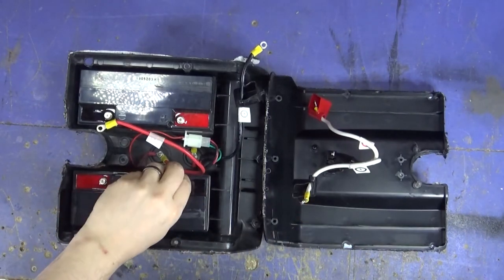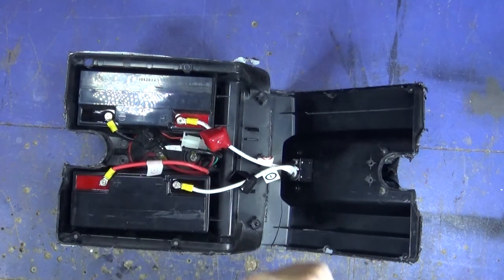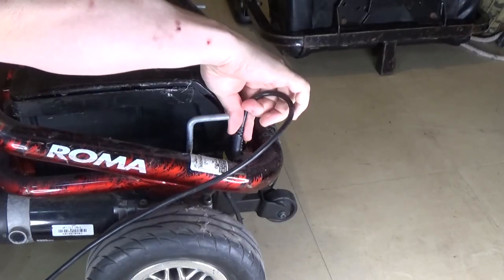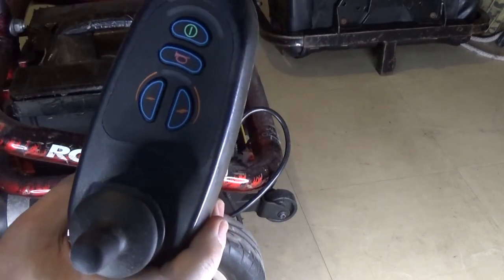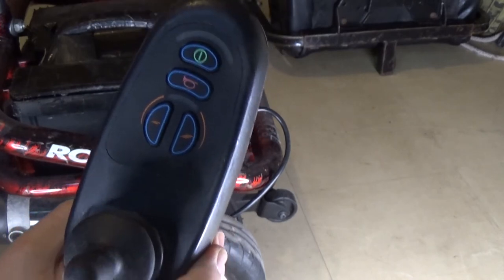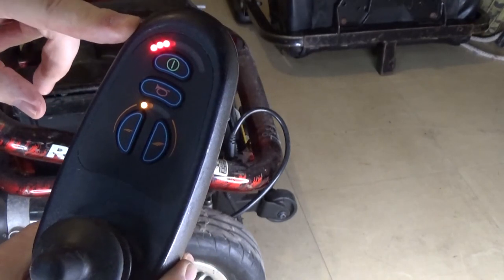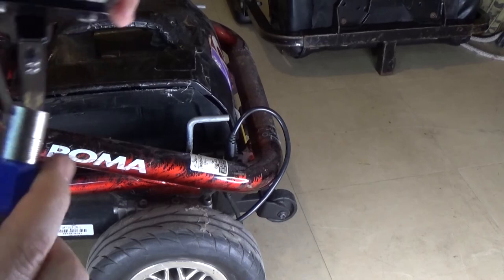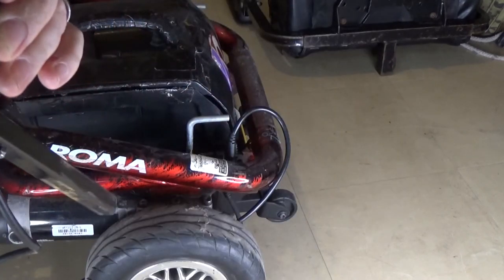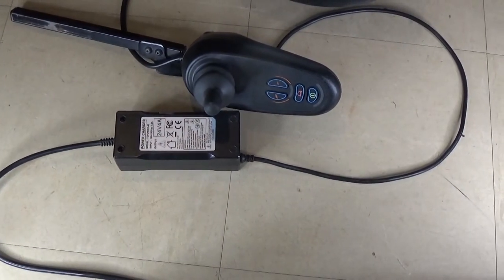I'm going to wire it up exactly how it was originally. I'll get this put back in the chair, we'll plug it in, and see how we get on. First job is to turn it on and see if that's done anything — if this is anywhere past the first dot then it's charged a bit. It charges just in here in the handle, which is a bit of a pain. We'll leave that charging overnight and see how we get on in the morning.